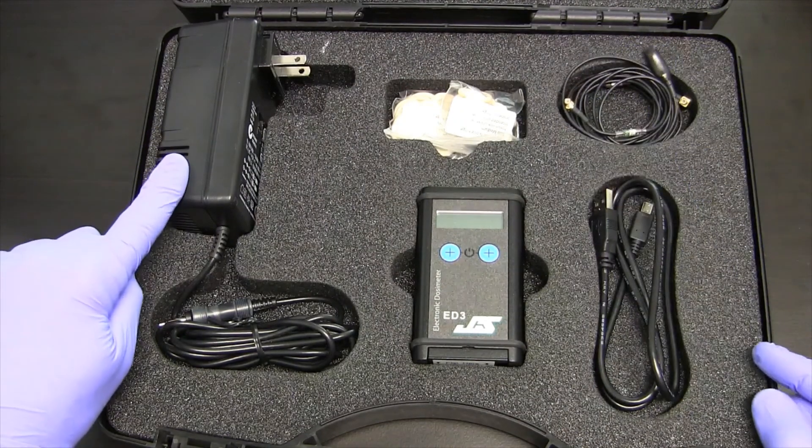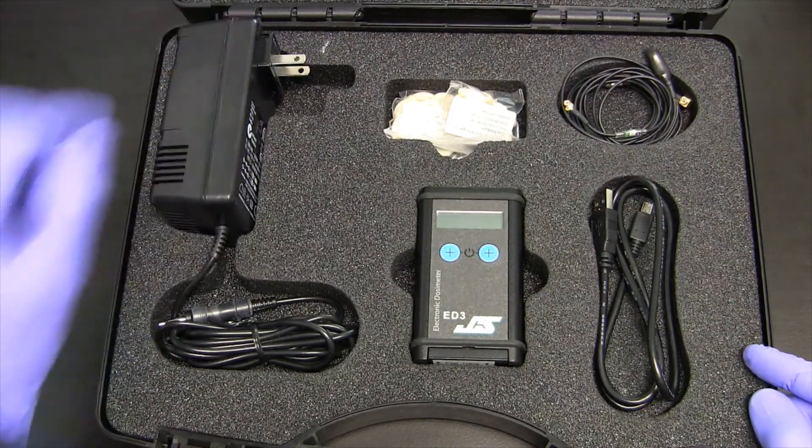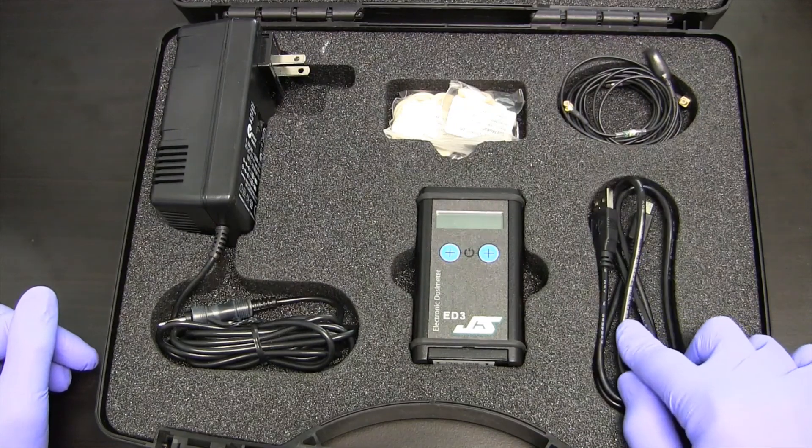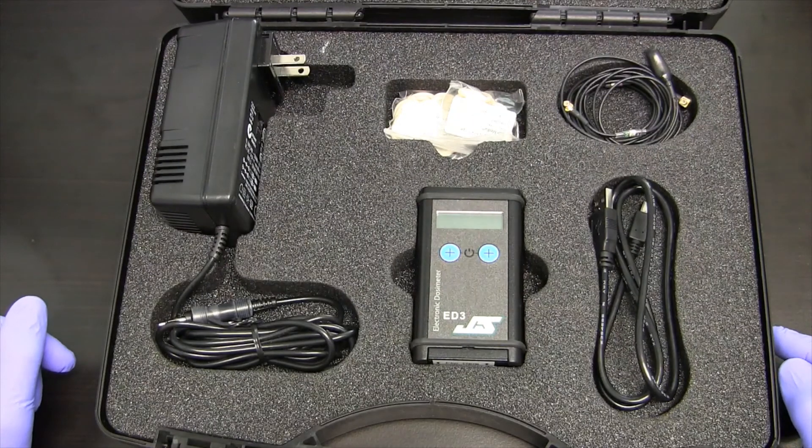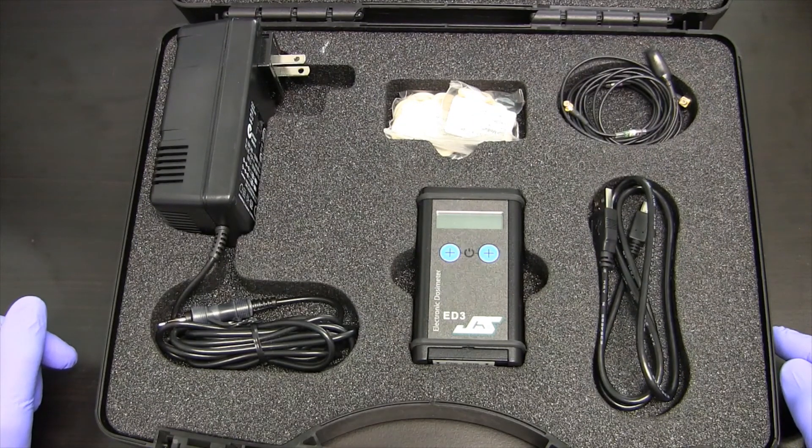Then we have the charging system to charge with different international adapters, the USB to extract the data from the ED3, and then different methods of attaching the detector to the fingers or to the extremities.